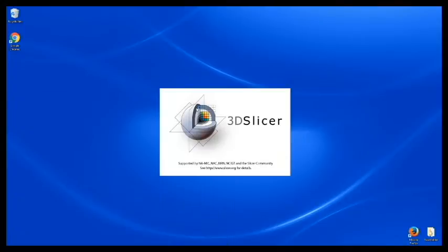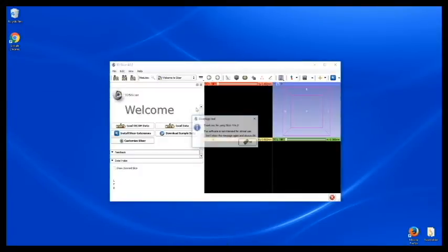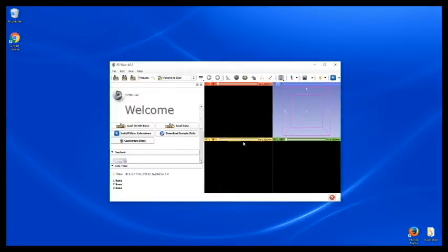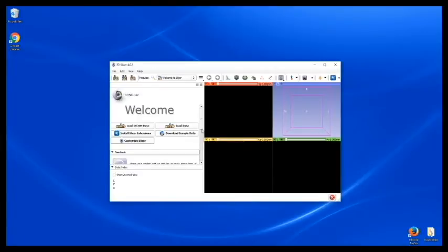So here I'll open 3D Slicer. 3D Slicer will allow us to take the DICOM data and turn it into an NRRD file. Once we have the NRRD file we can take it into a different program and that will convert it to an STL file for us.